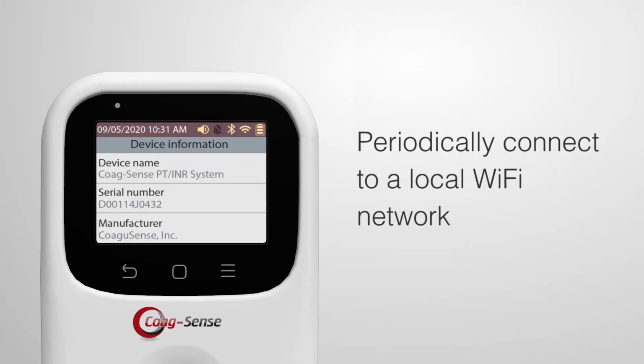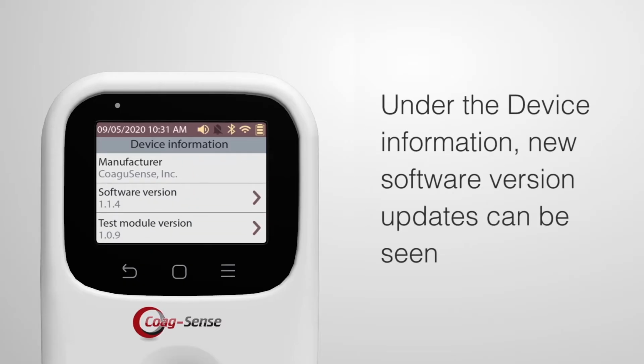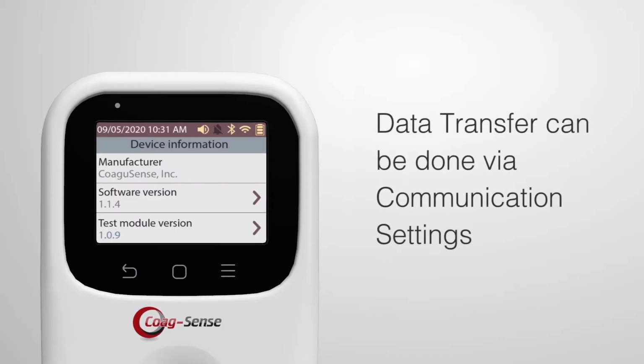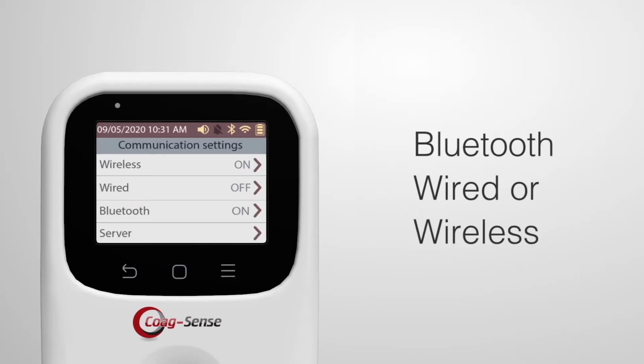It is a good practice to periodically connect to a local Wi-Fi network so that under the device information, new software version updates can be seen. Data transfer allows for data management externally. This can be done via communication settings of Bluetooth, wired or wireless capability.